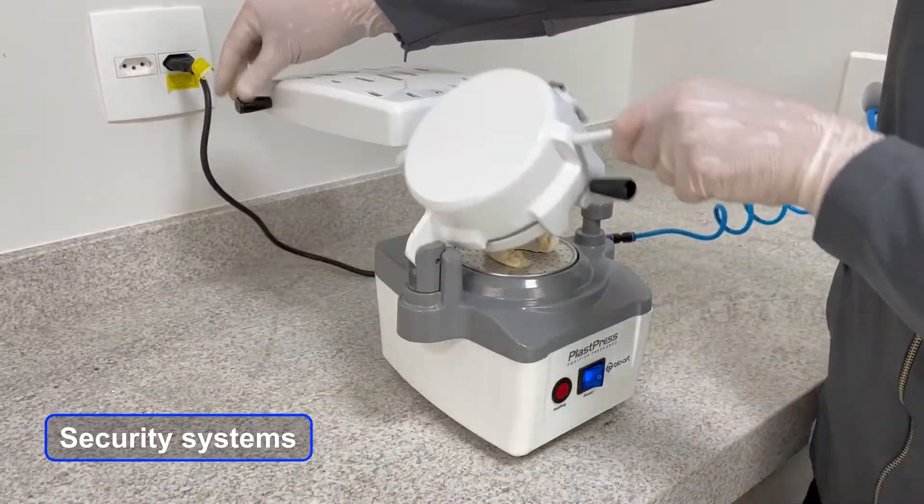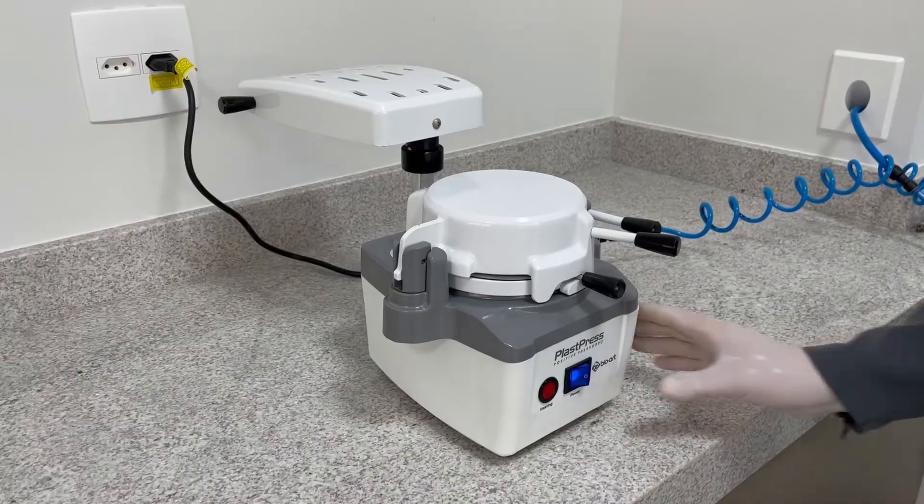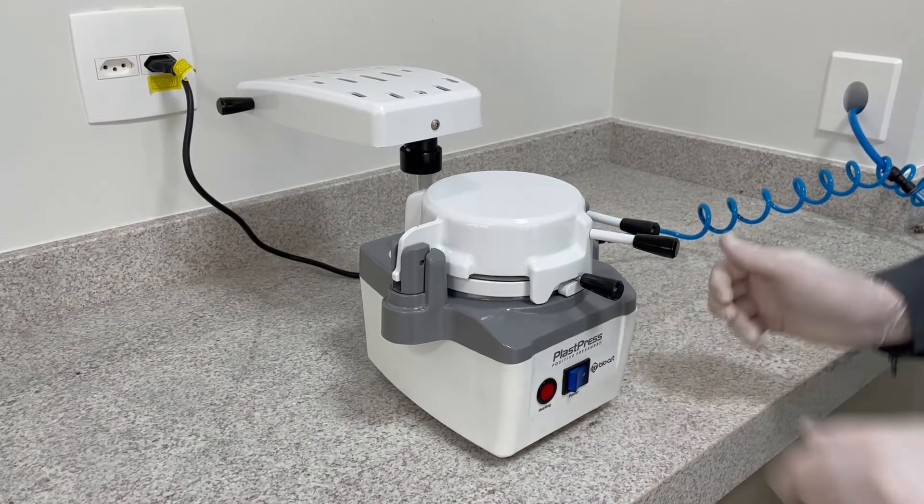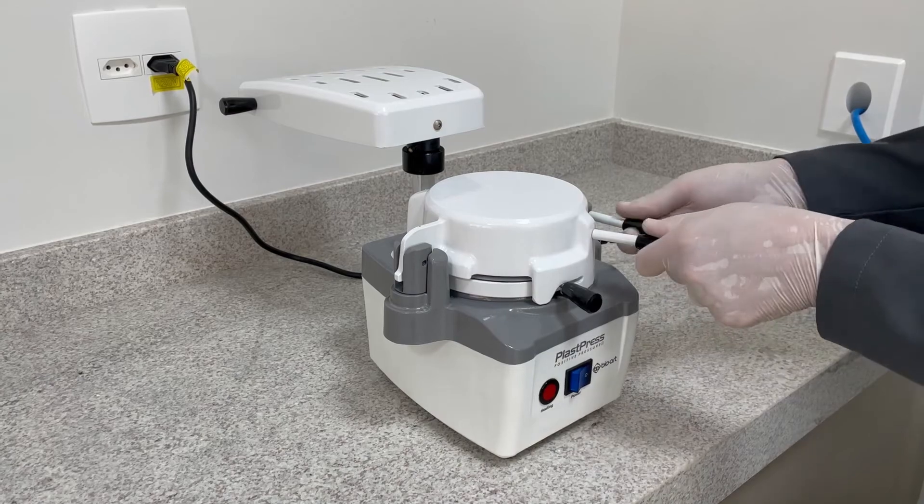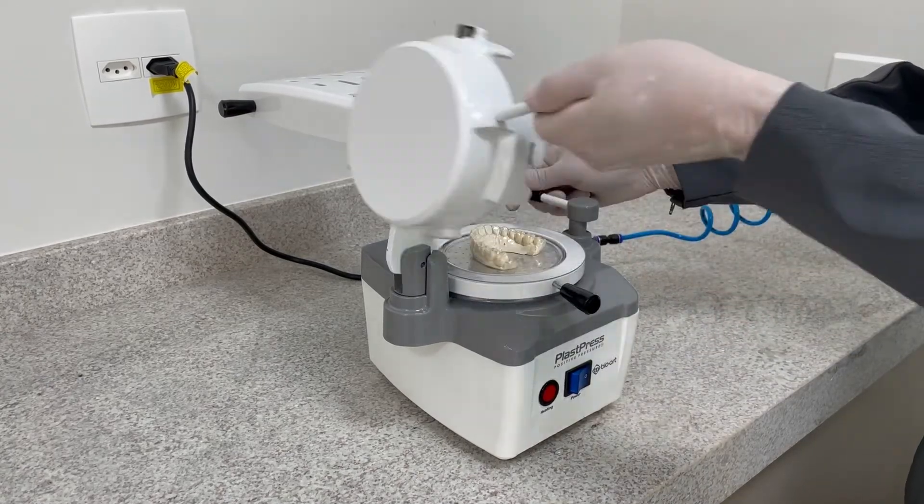Automatic pressure activation through valve. With it, you have better control of the conformations and greater fidelity in the copy.